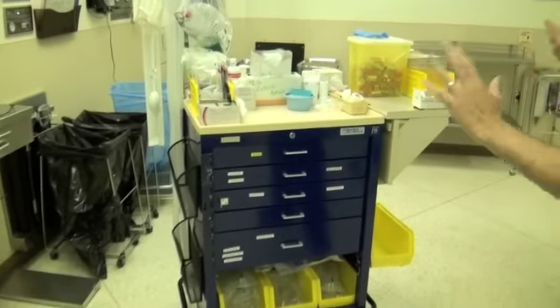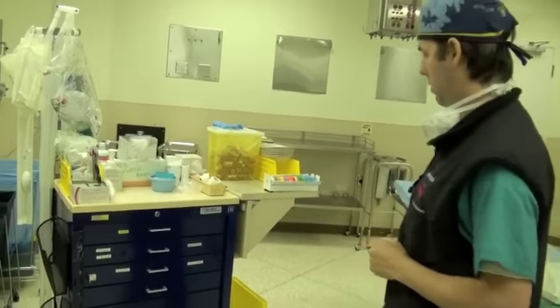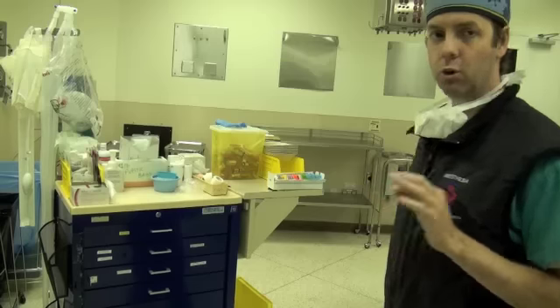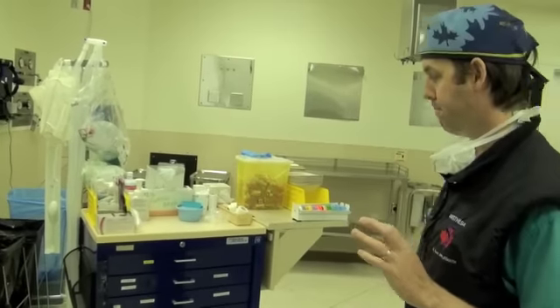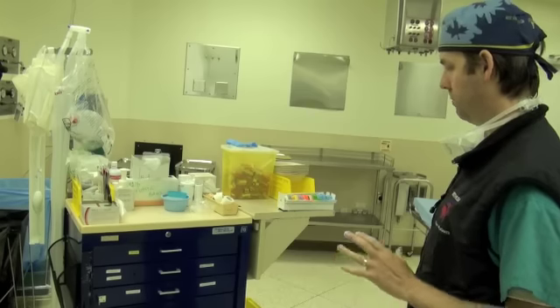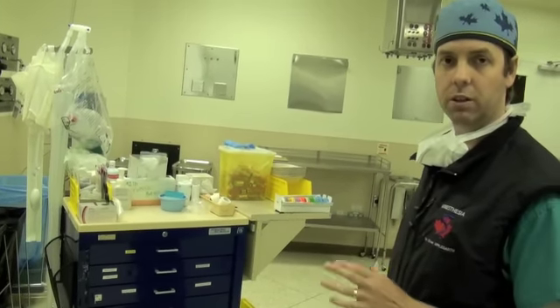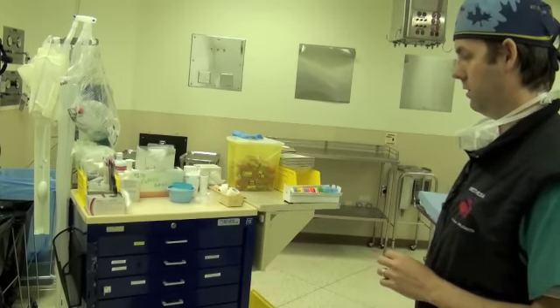We'll go over the anesthetic cart. This is always an area where when a student walks in and does anesthesia they're not that familiar with how a cart is set up. If you're a little bit more familiar with it you'll be able to at least know what the staff person you're with is talking about and where to find everything. The cart is different at every location, but there are common themes. I'm familiar with VGH's carts, so we'll be walking through that. I would suggest you take a moment at your facility to go over your cart and see the differences and similarities.